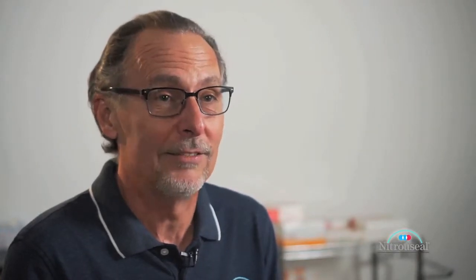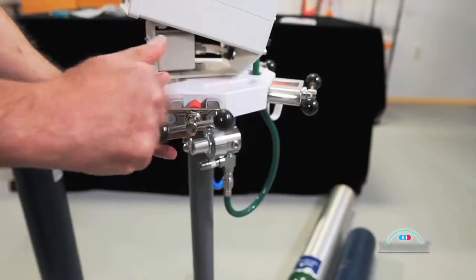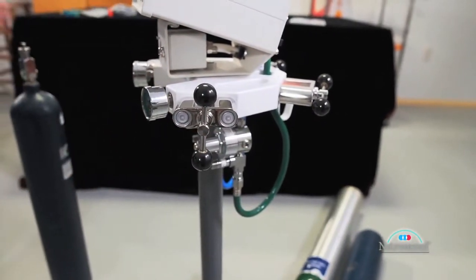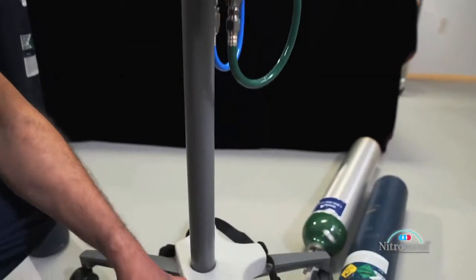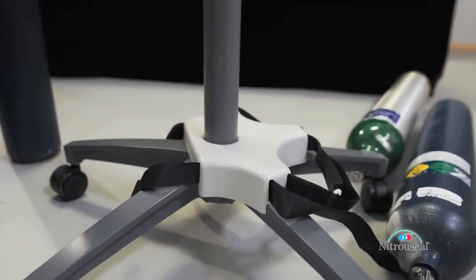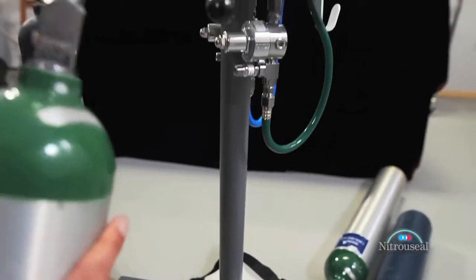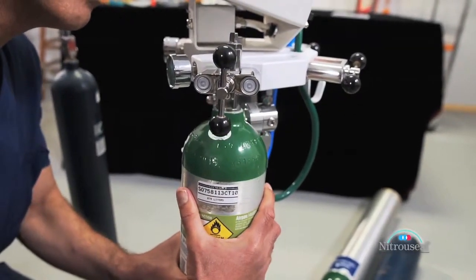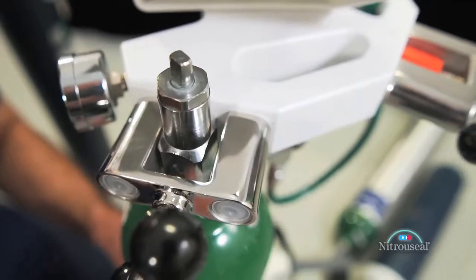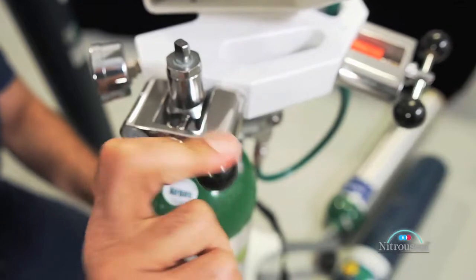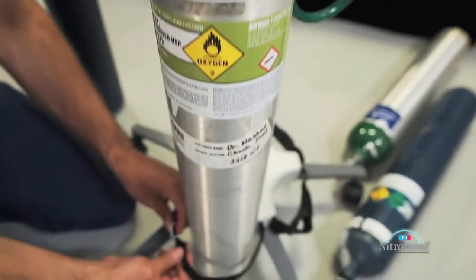Open one of the four E-cylinder locking yokes by spinning its handle counter-clockwise. Then undo the Velcro straps at the bottom of the stand. Place the top of the E-cylinder into that yoke and align the input socket on the manifold with the cylinder connection pins. Affix the cylinder on the manifold by pressing the cylinder top portion against the manifold until the pins are securely placed within the manifold socket. Then tighten in place by rotating the yoke handle clockwise. Secure the Velcro strap.